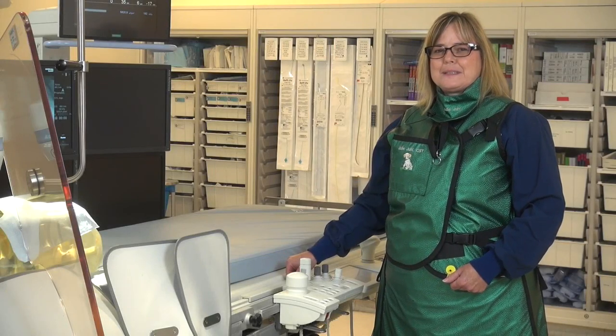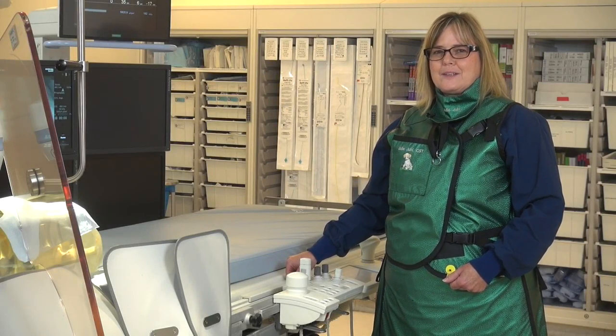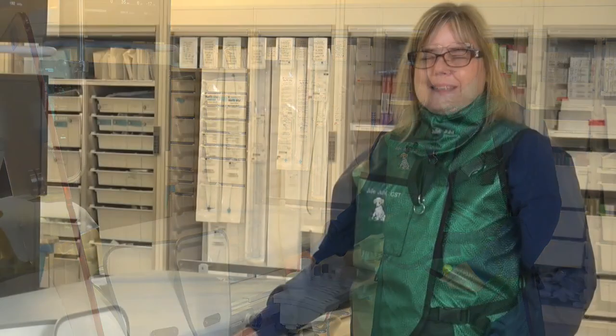My name is Terry. I'm a radiologic technologist that works in the cardiac cath lab setting. Today I'm here to talk to you about dose-saving measures in the cath lab.